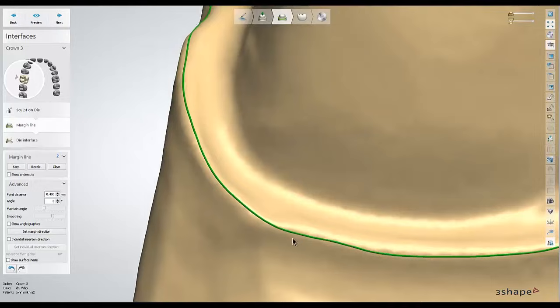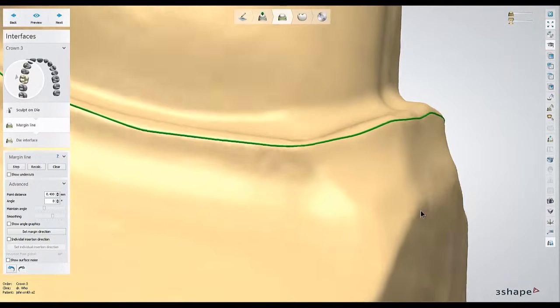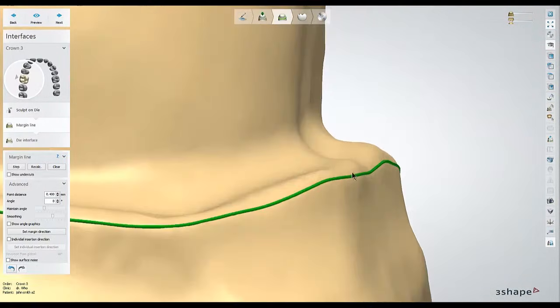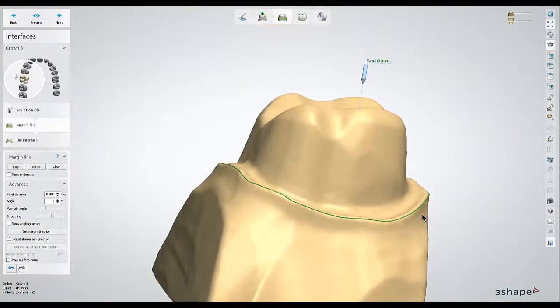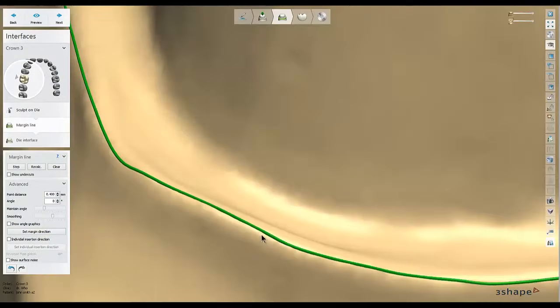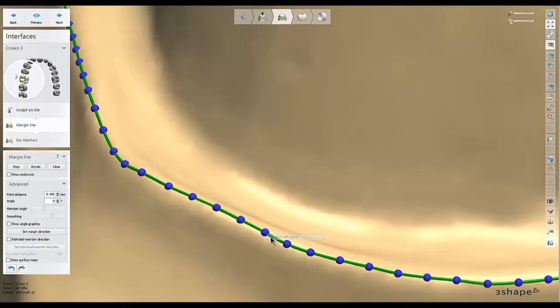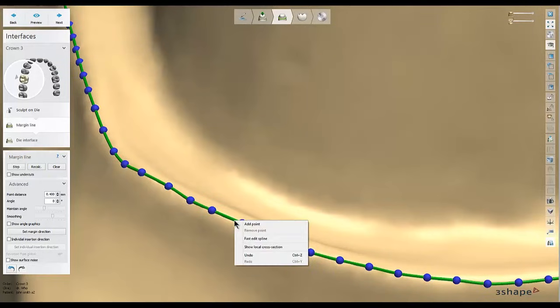I usually like to look at the die in a profile view — that way it's a little bit easier to see the height of contour of the margin. At any time, you can right click directly on the margin to get out of this fast edit spline mode. When you're out of that fast editing mode, all of these dots will appear, which you can simply drag and drop around. I usually won't use this tool extensively, but it can be useful to get some detail on a specific part of a margin.